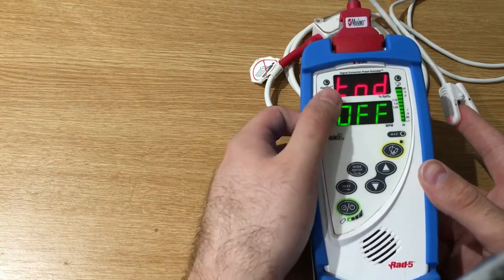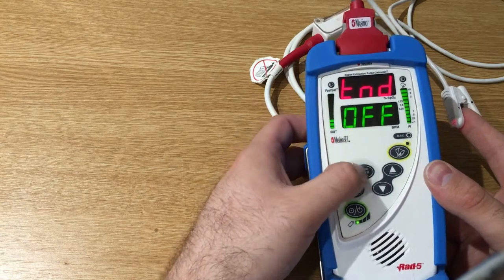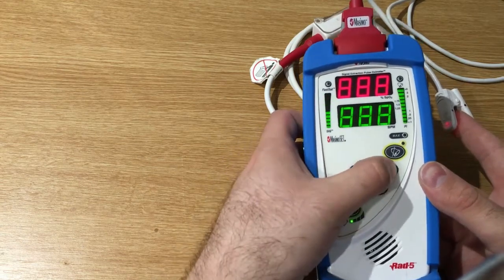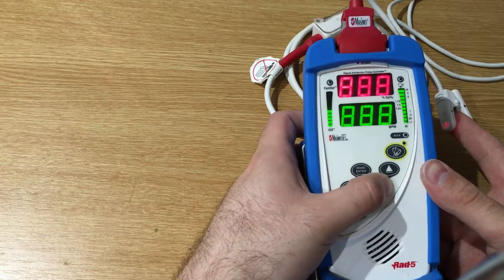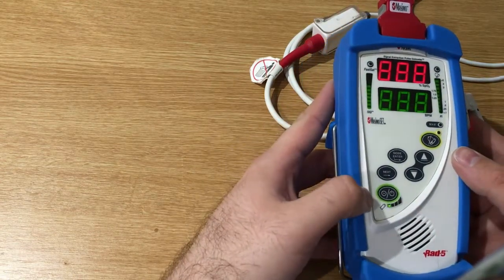And this is the trend menu, and here we can set the brightness of this pulse oximeter.